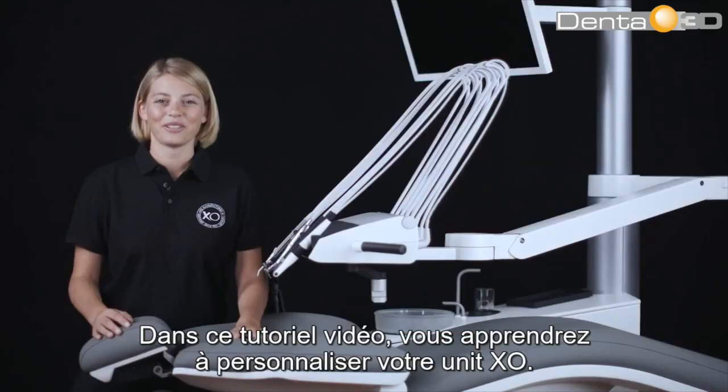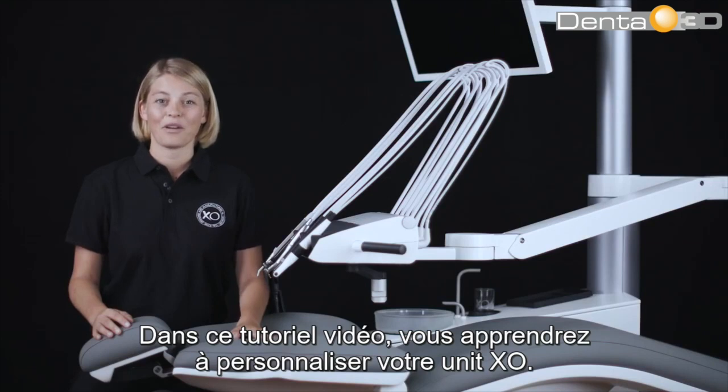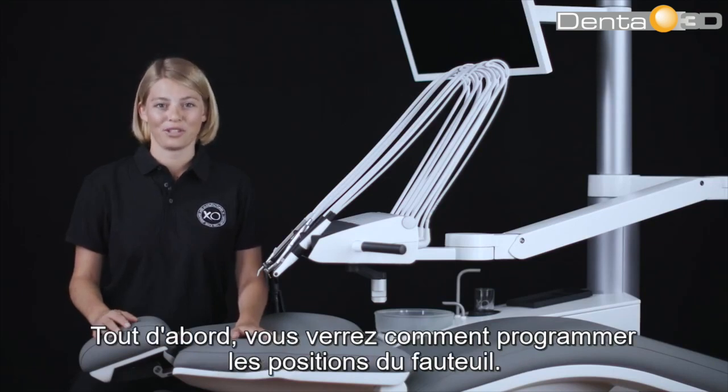In this video tutorial, you will learn how to personalize your XO unit. First, you will see how to program the unit chair positions.